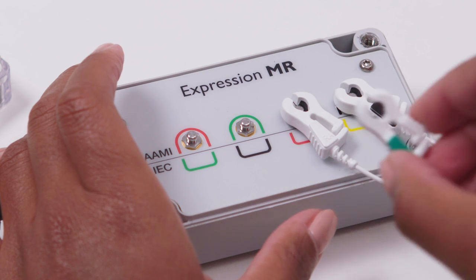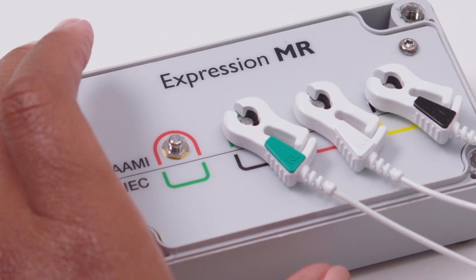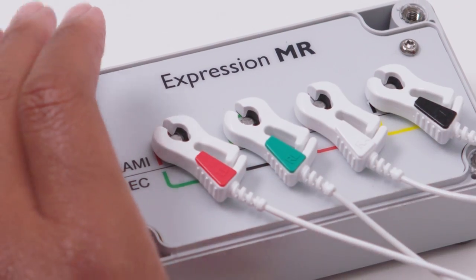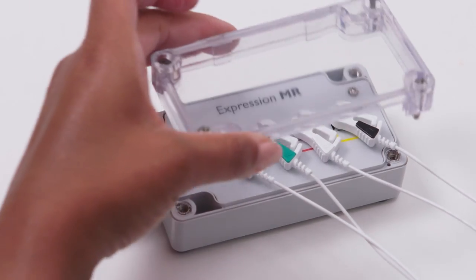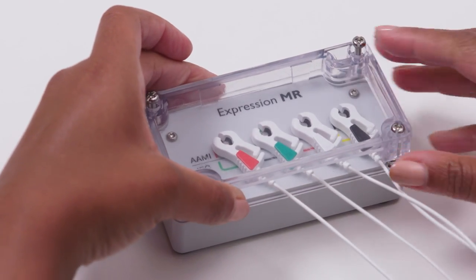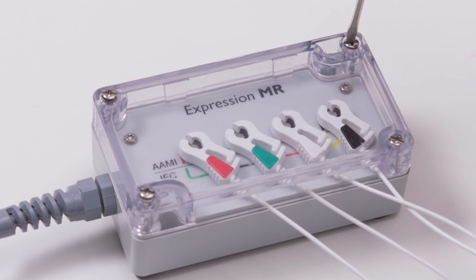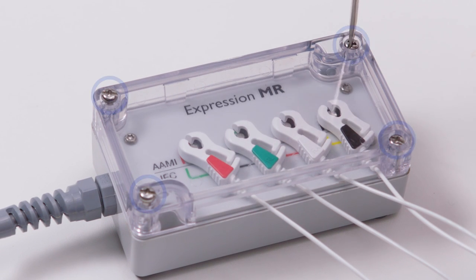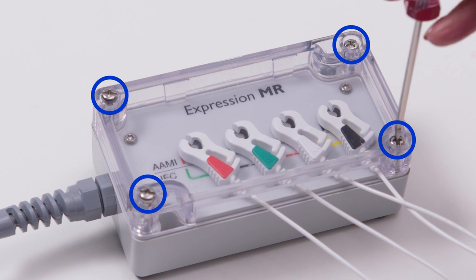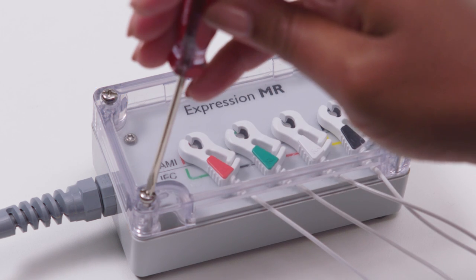Once connected, the MRI system will receive the ECG signal through its lead wires connected to the cable box. Replace the plastic cover after connecting to prevent accidental touching of the metal connections. Be sure to use MRSAFE tools to remove and replace the protective cover, or remove and replace the cover outside of the MR room.